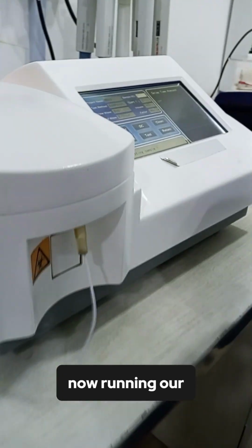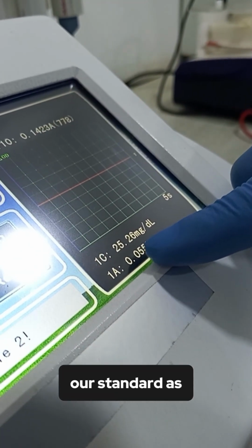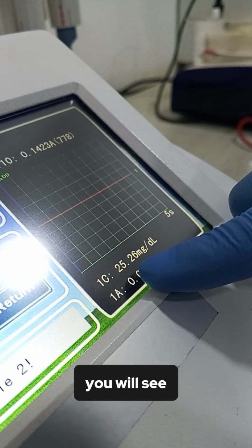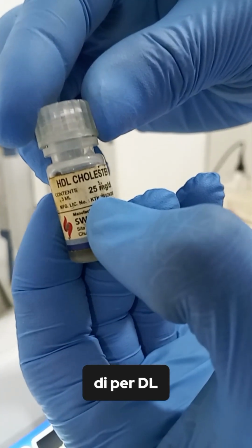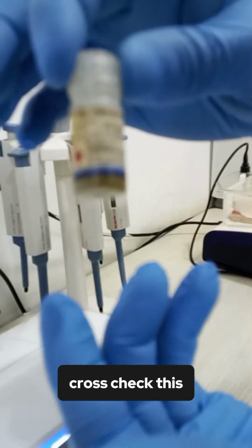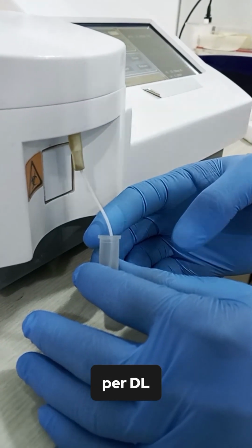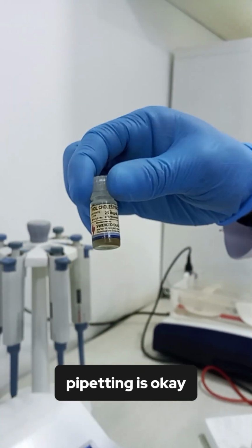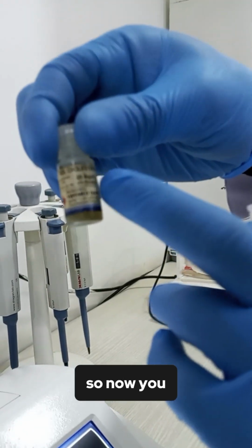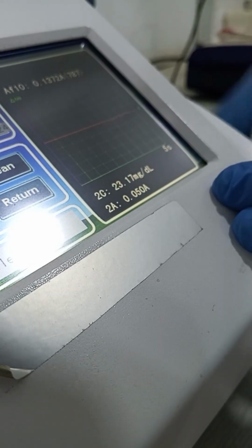Now we are running our standard as our test. Watch closely and you will see. Look at the value of our standard now, 25.26 milligram per dL. Now, if you cross-check this standard with the standard provided by the manufacturer, look at it. It's 25 milligram per dL. That is to say, we are doing well. Our aspiration, our pipetting is okay. So now you can run your test.